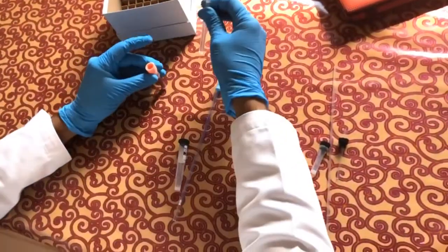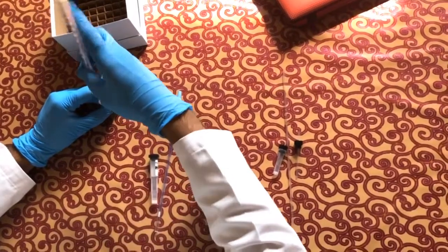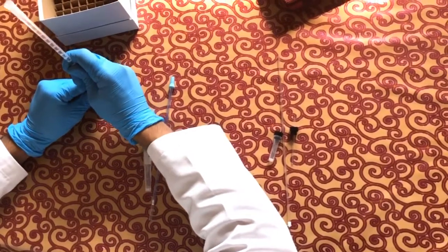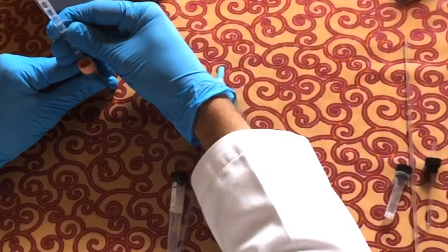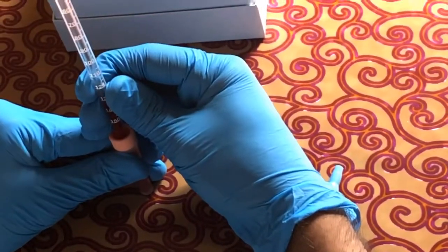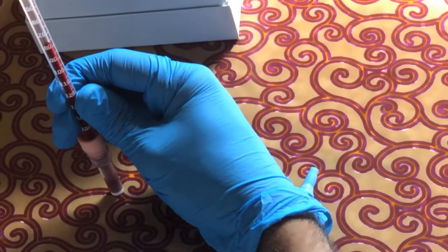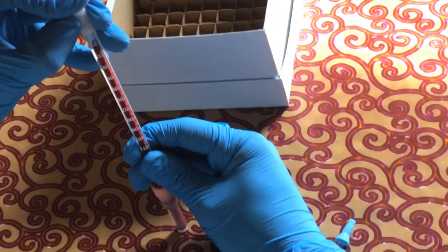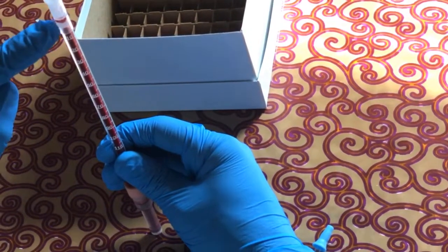So we keep it straight like this at the ground level, not in the air, nothing as such, at the ground level like that. Push the tube slowly and let the blood pass, but not with too much speed. We need to push it slowly, otherwise the blood will overflow. So you push like that inside slowly, and then you go one by one, and you can see the blood moving upwards. This upward movement of the blood is necessary till you reach the above line. That's it, till here. This is an indication that enough blood has reached.